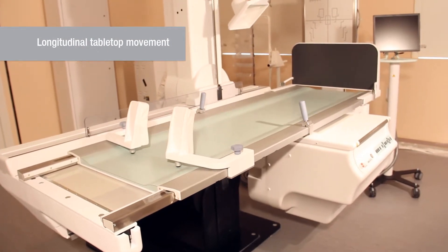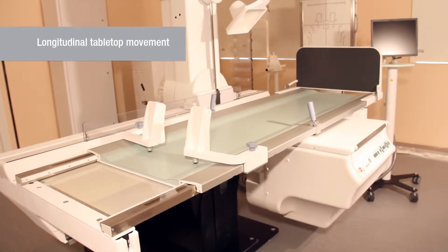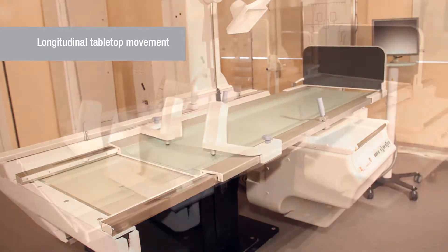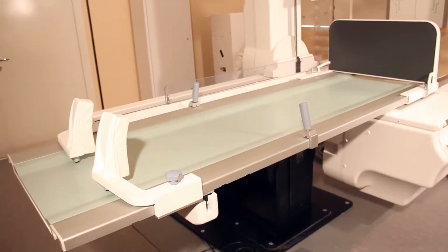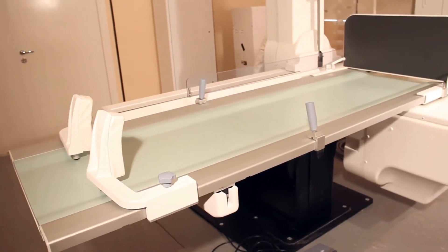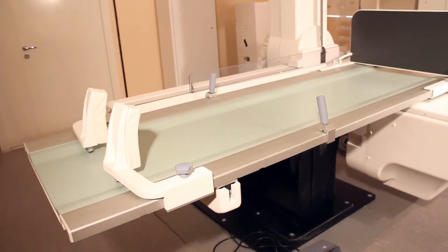Longitudinal tabletop movement with its maximum range of 110 cm enables to quickly and easily examine a patient at full body length.